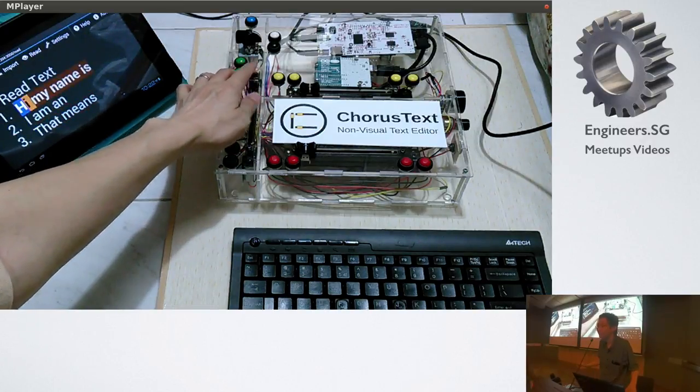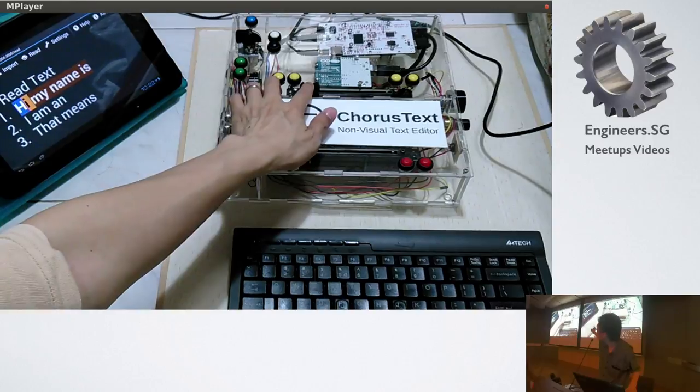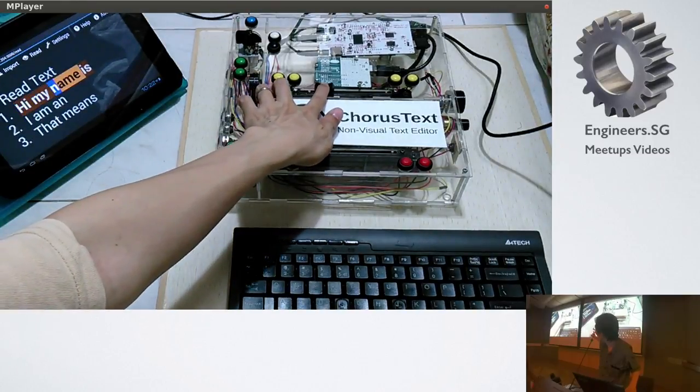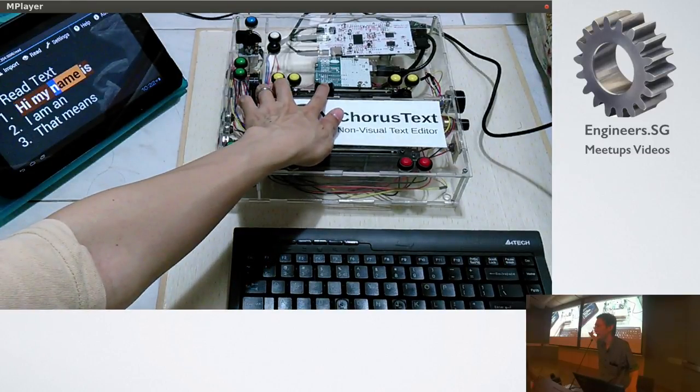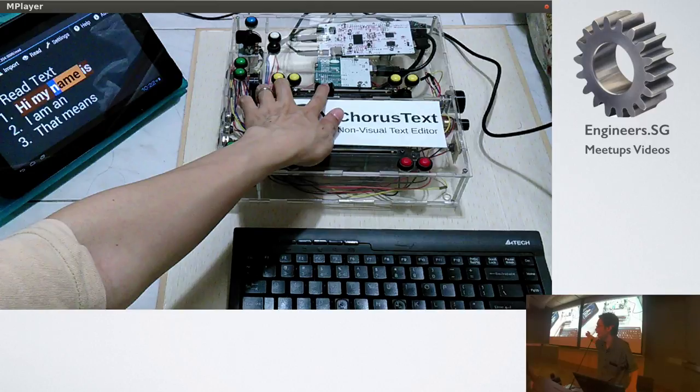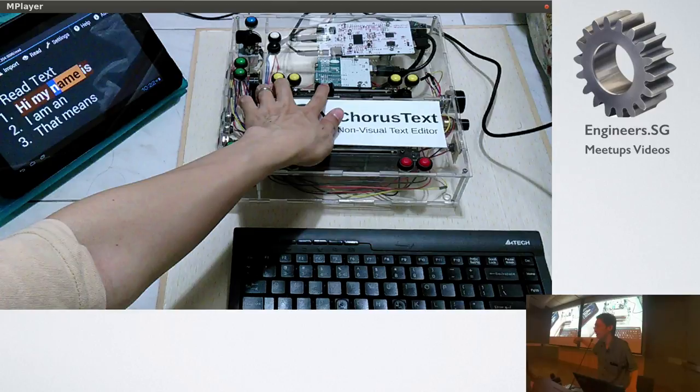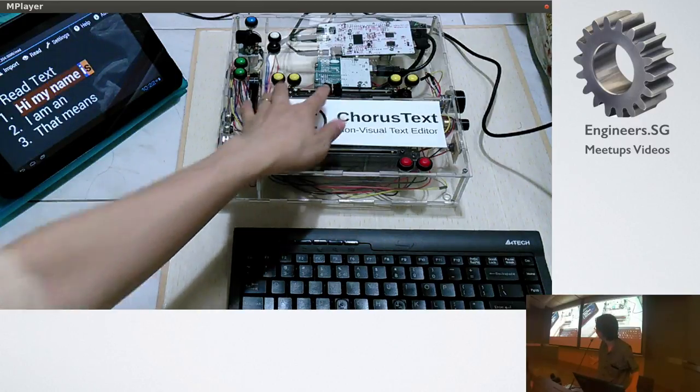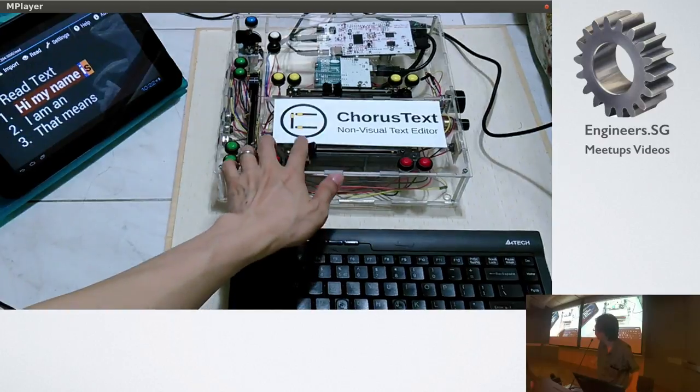Hi. My name is David. And then? My name. Name. And then this is, I'm going through word by word in that line. Right? That line has the three words in it. Hi. My name is. It was resting on position one. And then I slide it to position two. Then it pull out the second word. Right? Name. My. And then I slide it to position three. It pull out the third word. Name. Is. Is. Is.